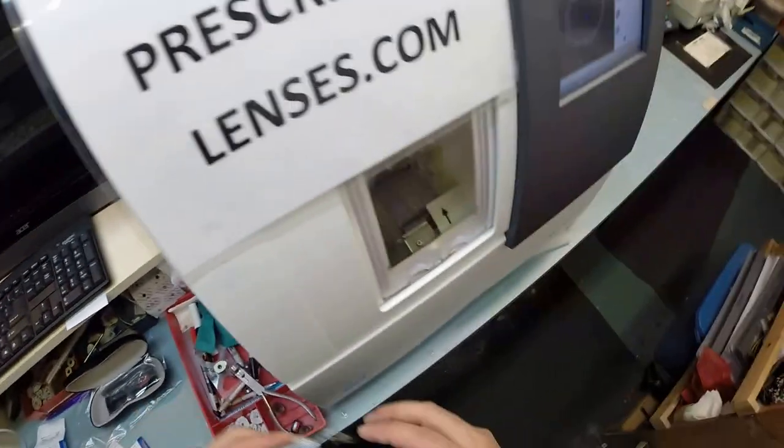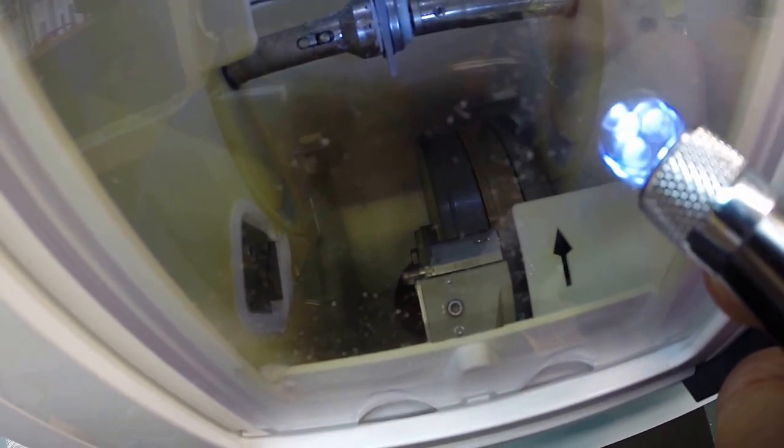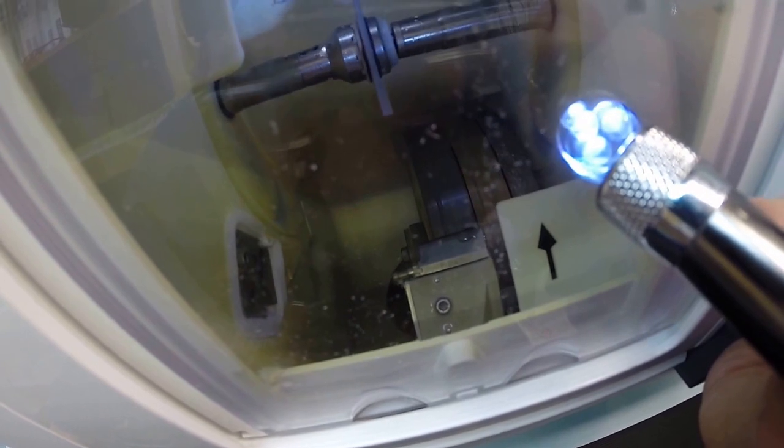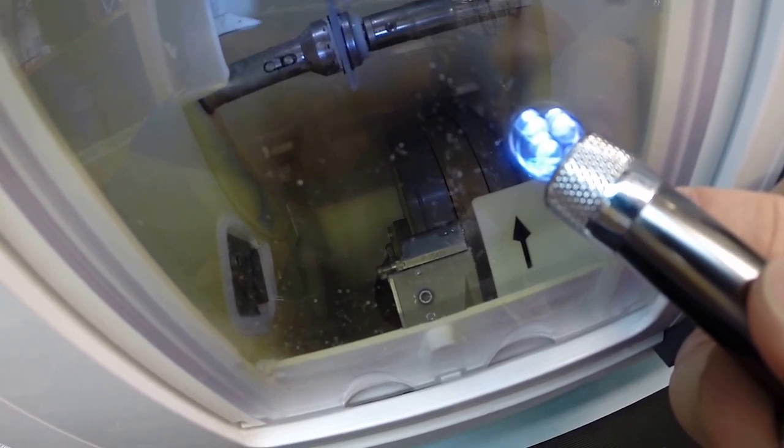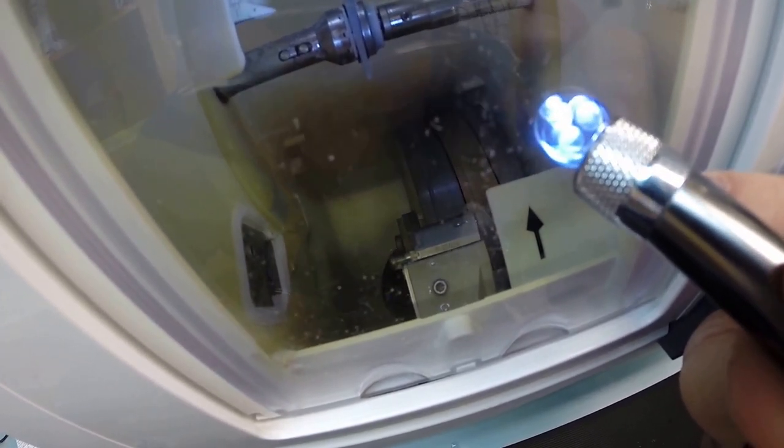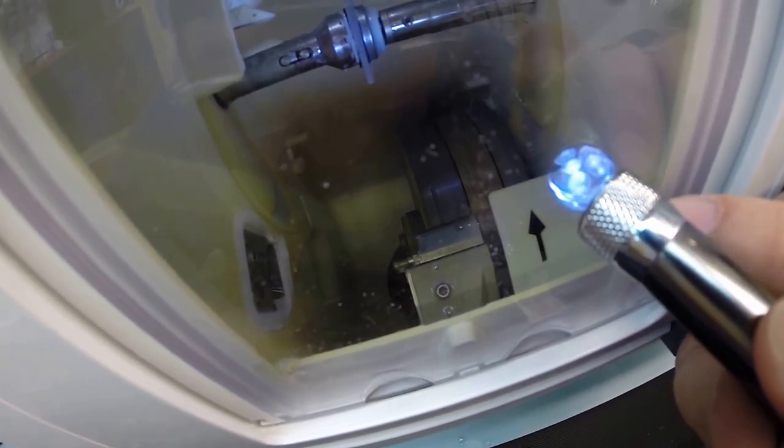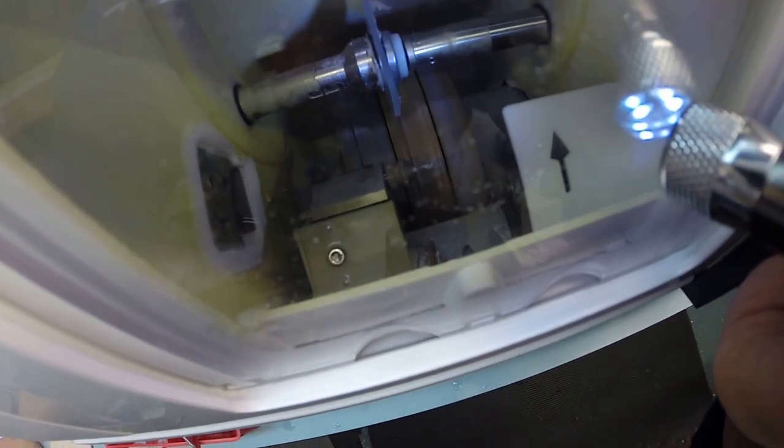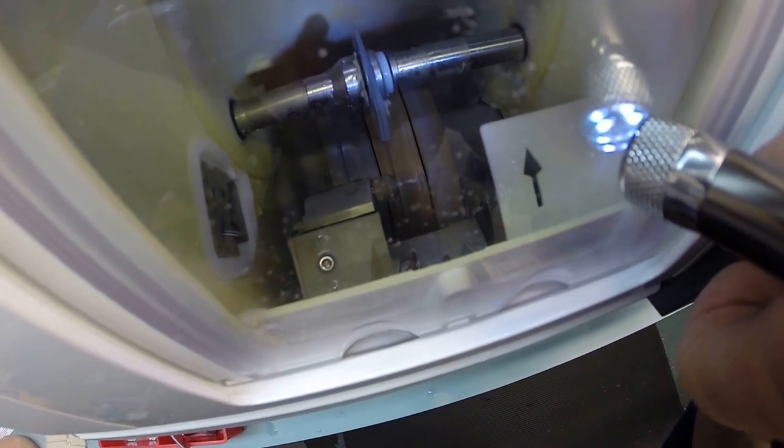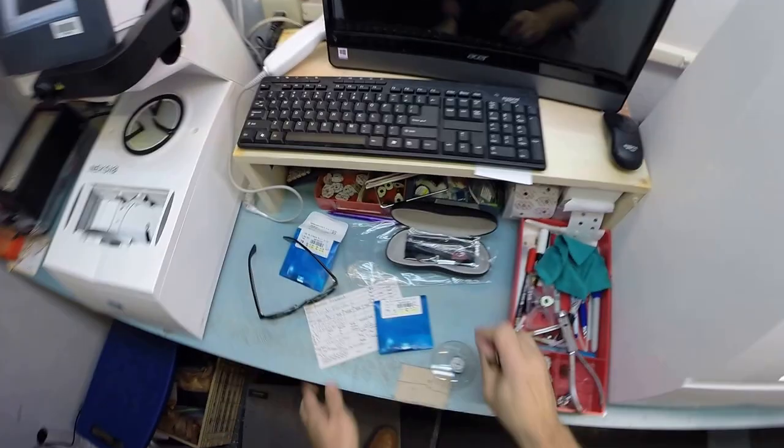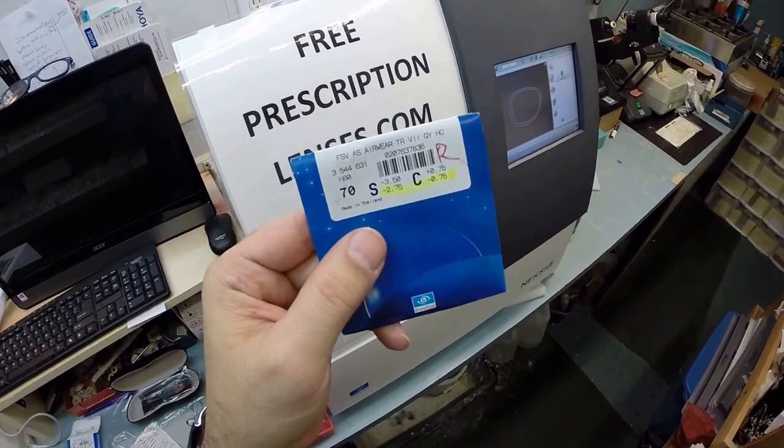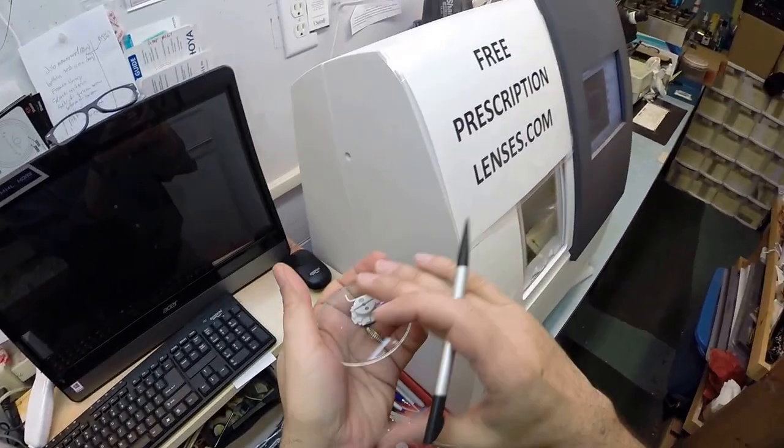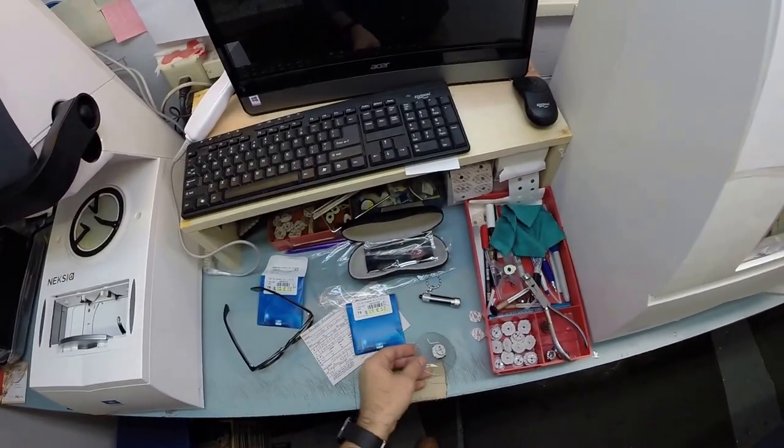Your eyes are eight times more sensitive than your skin. This is the final shape. If you notice, your lens is still completely flat at the edges, just like a nickel. It's tracing one more time to find the exact precise placement where to place the bevel. It's constantly re-evaluating itself. Now it's going to go down onto the bevel wheel and get the knife-like bevel put onto the lens. Your lenses are also aspheric. AS stands for aspheric, which simply means not spherical. A spherical lens is completely round in every direction and gives you an ugly cosmetic fishbowl appearance.